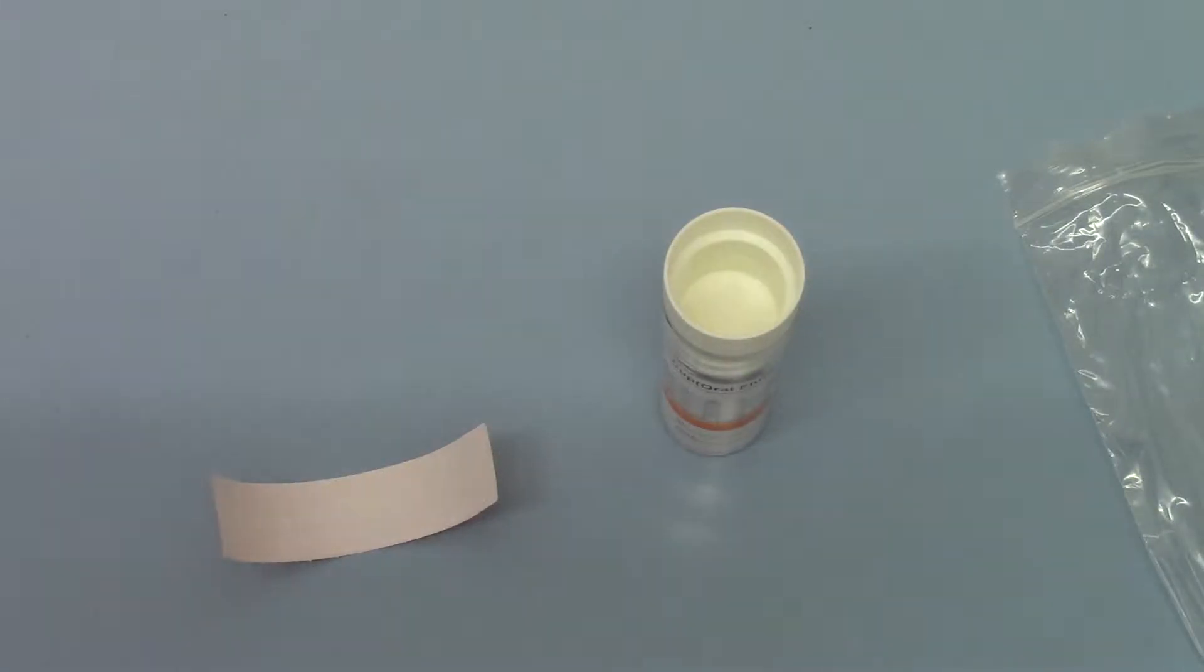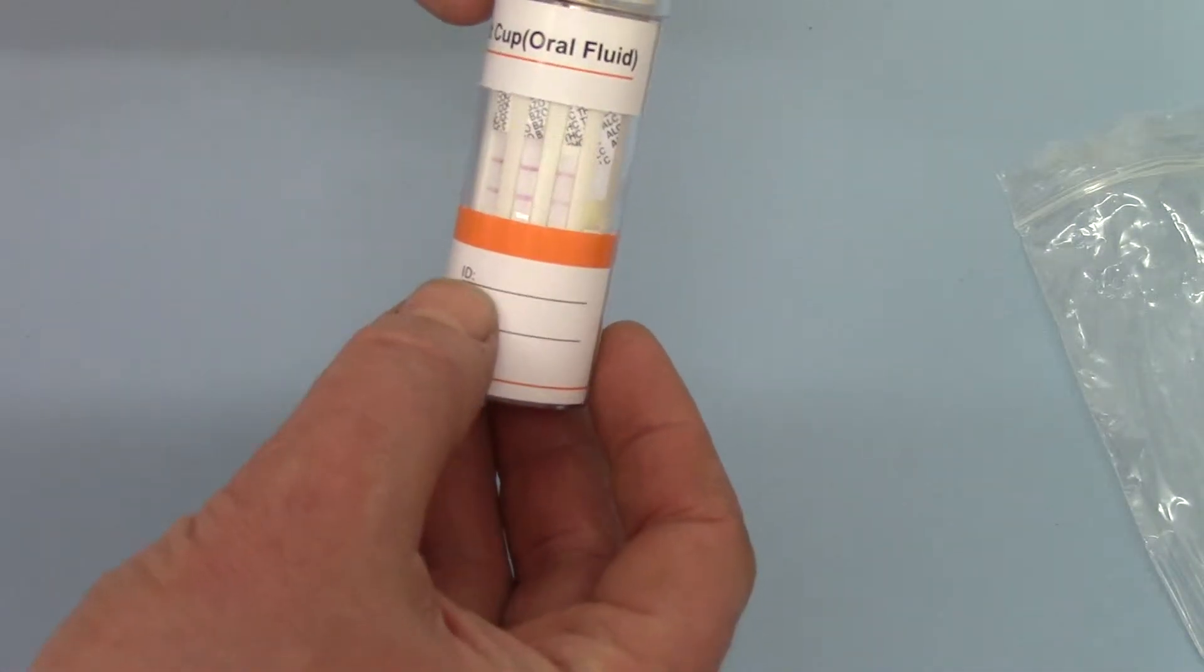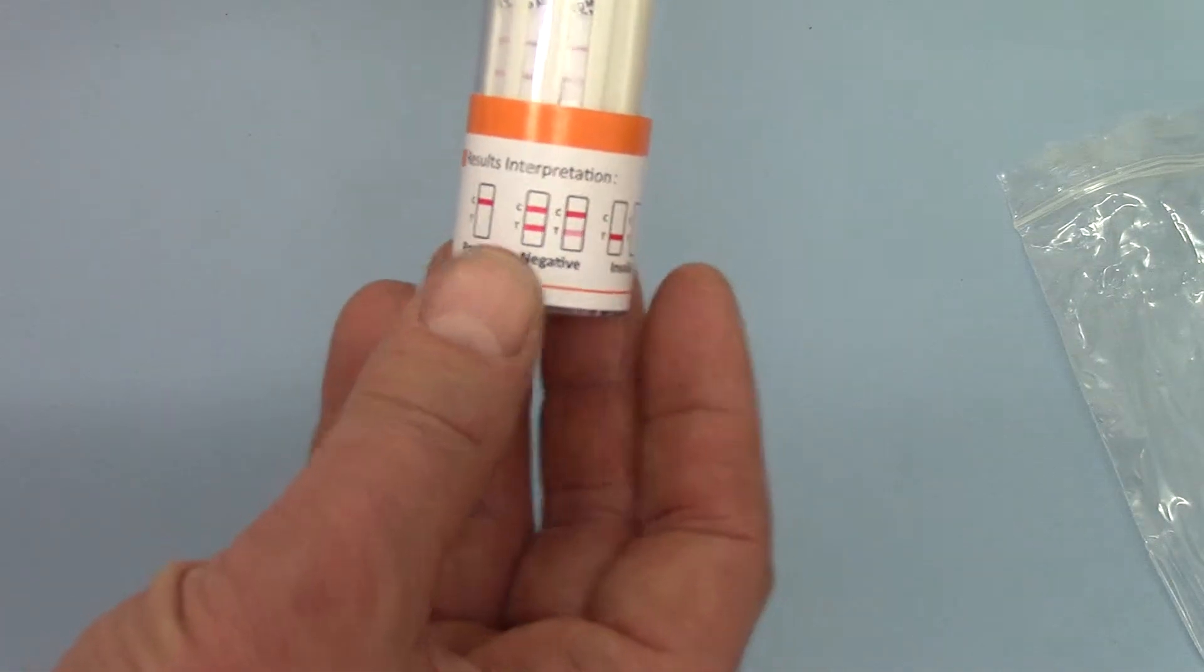There's no problem with taking the test window cover off before the read time, makes no difference procedurally to the test. There are areas for identification of the donor and the date to be recorded on here.